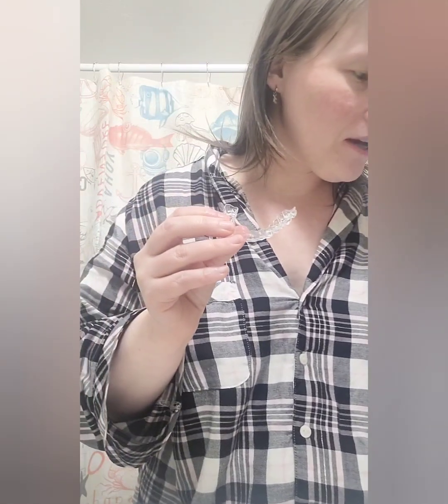If I do too much in my mouth, I can't feel where it's supposed to go. And then as soon as I go to pop out a side, it just comes apart. We got elastics and I've been filming now for like 20 minutes and I still can't get my elastics in my mouth.